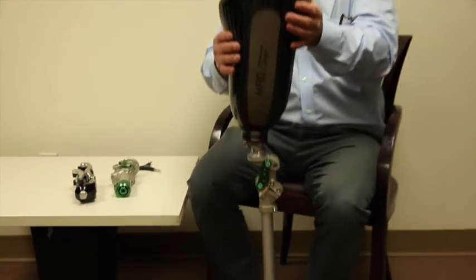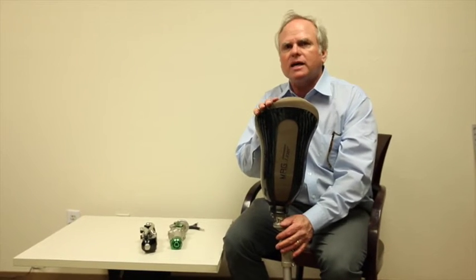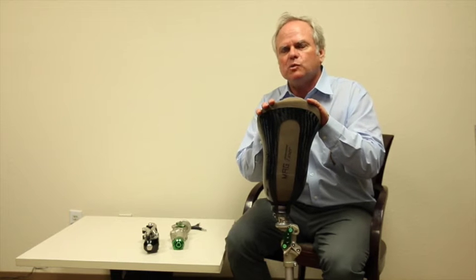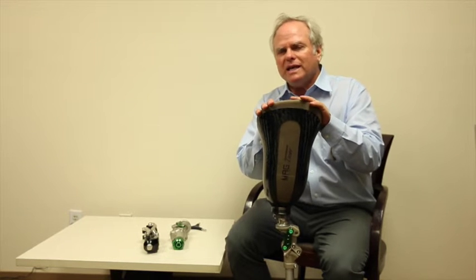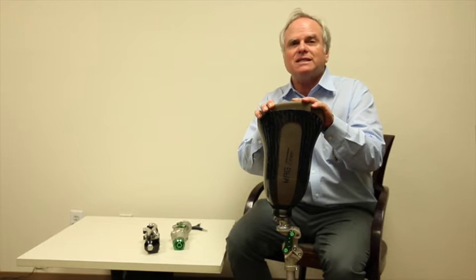Now not everything works straight out of the box. Not everything is set up perfectly for each individual patient. You'll have a patient who needs more security or one that needs less security.